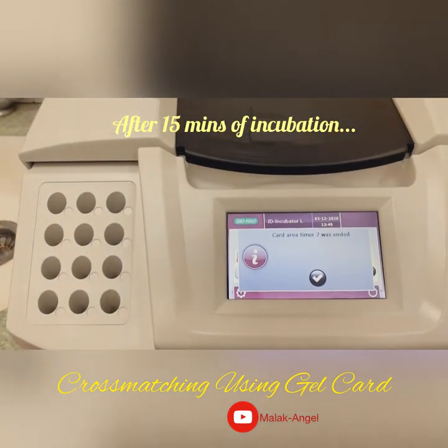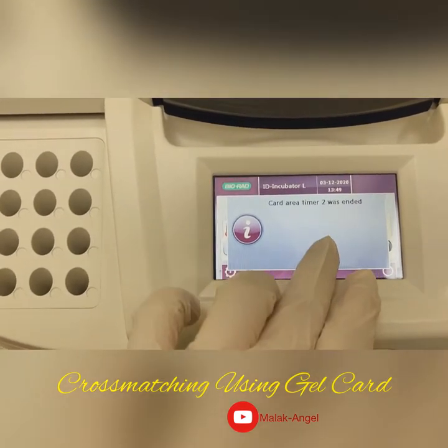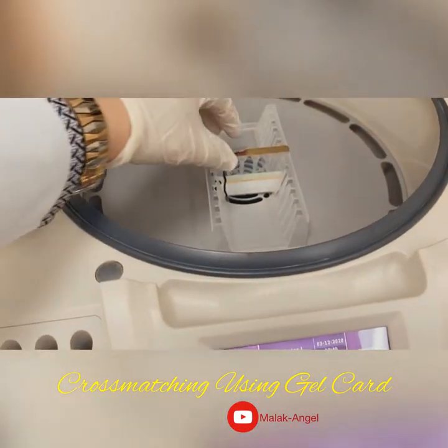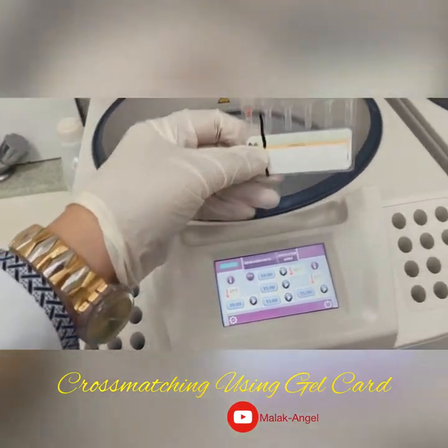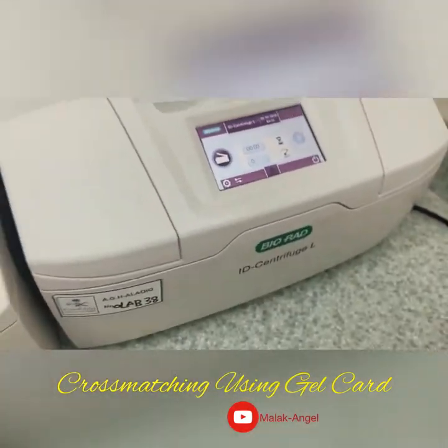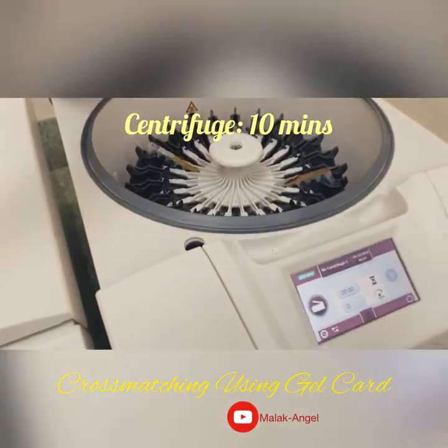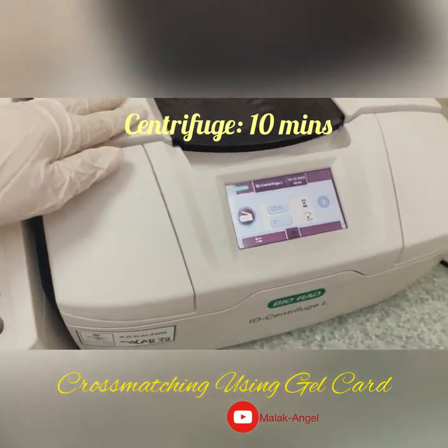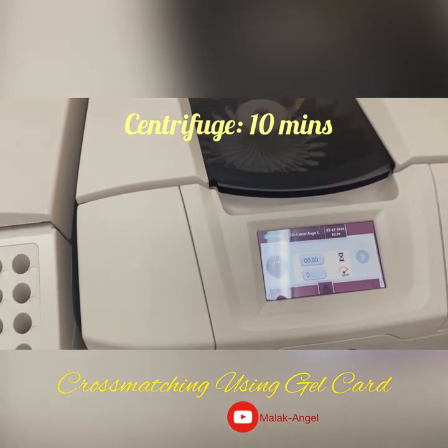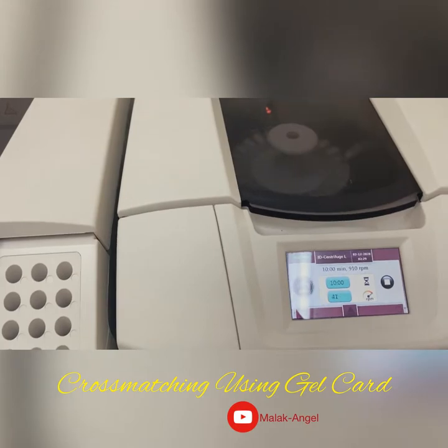The incubation period of 15 minutes is now finished. I will take the card out. After incubation, we will now centrifuge for 10 minutes. This is the centrifuge — it should be balanced. Press start. We will wait for 10 minutes.